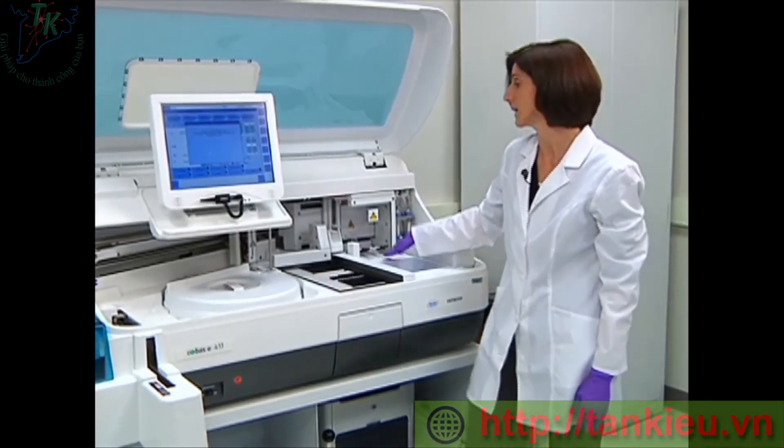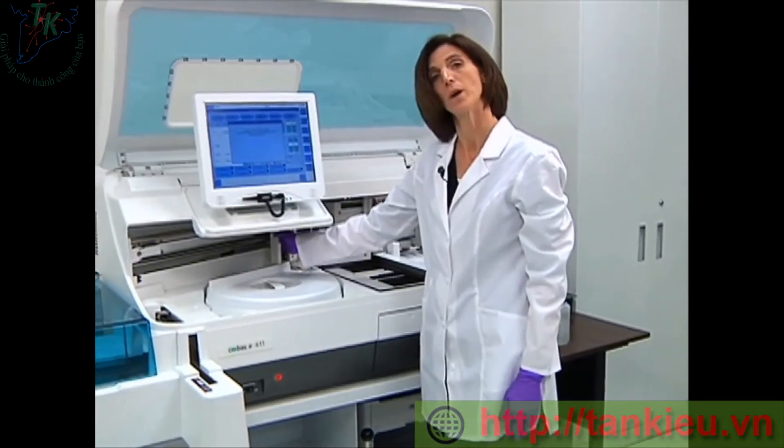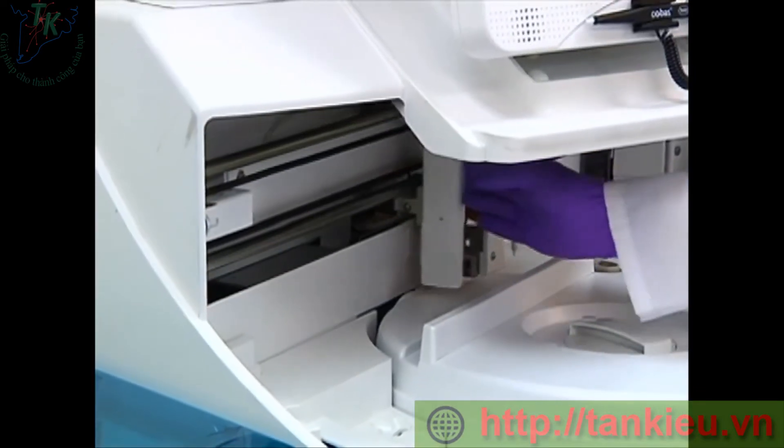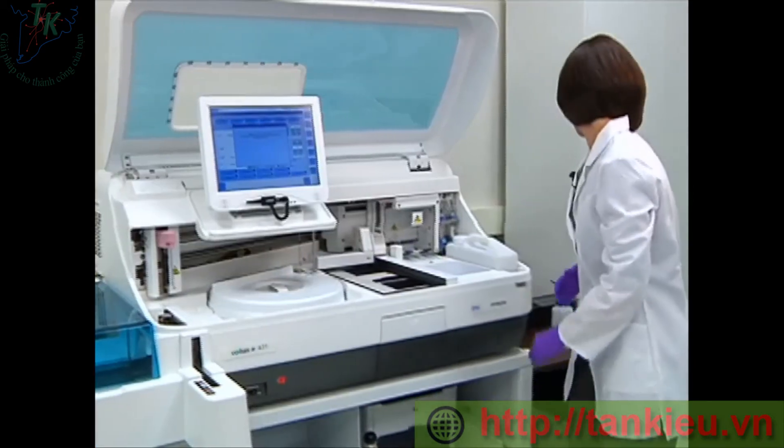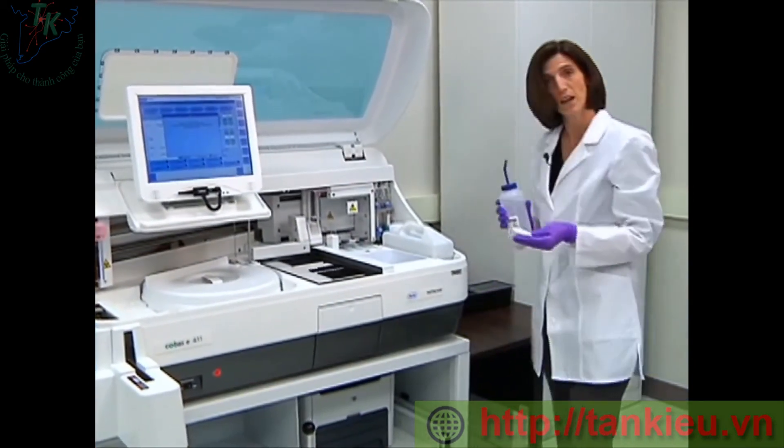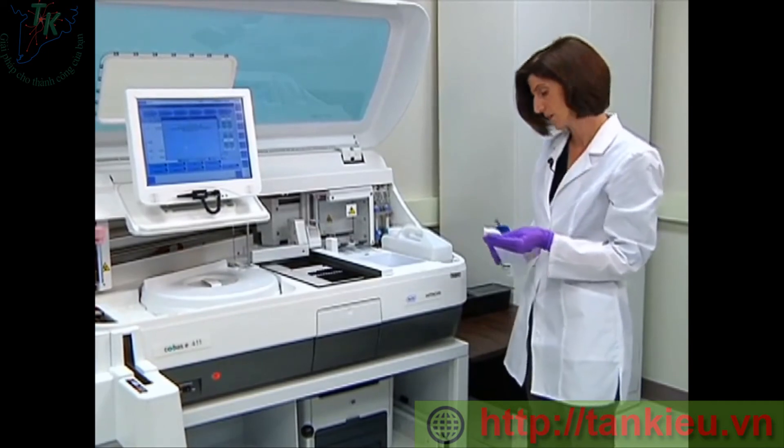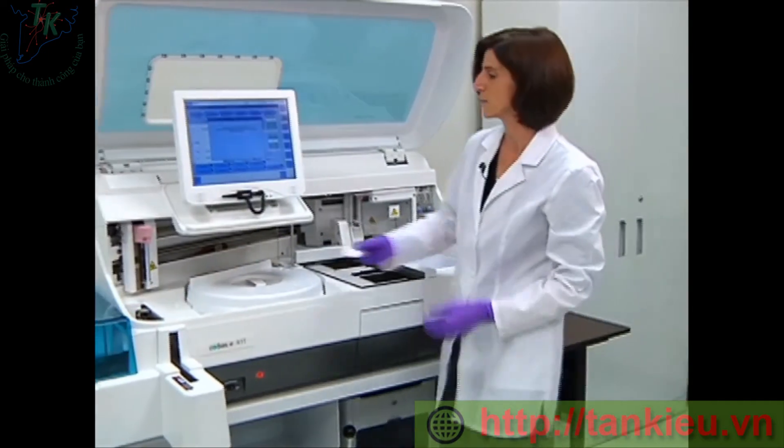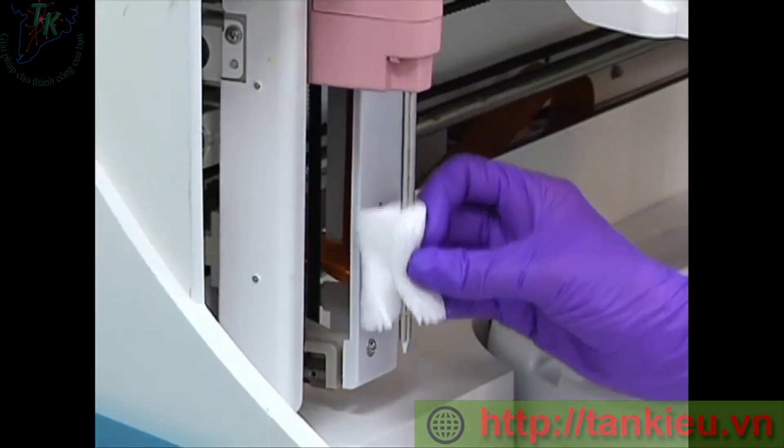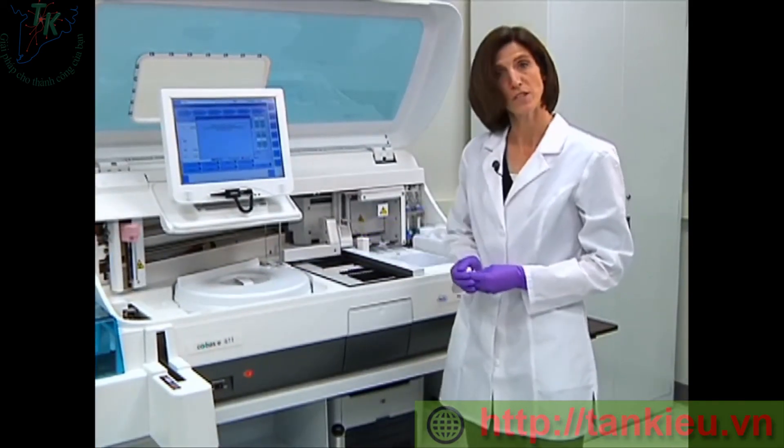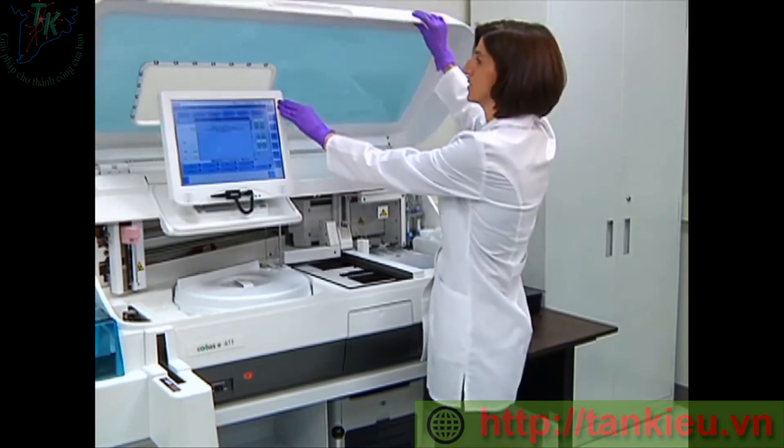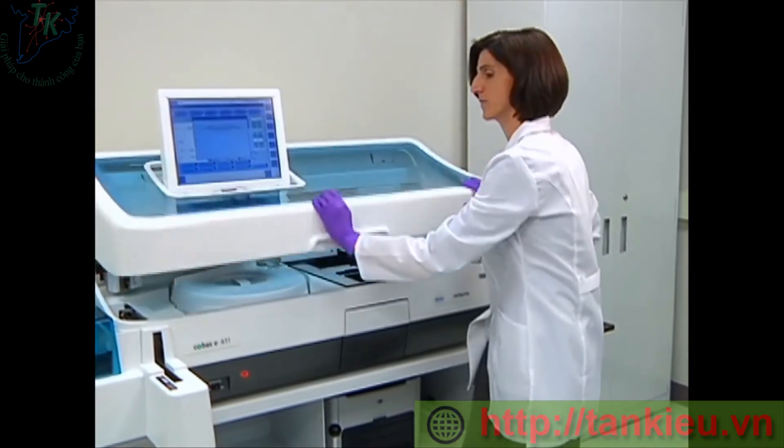Next, we would clean our sample reagent probe. So I'm going to move the sample reagent probe all the way to the left-hand position. Then take deionized water on gauze and simply wipe down the length of the probe.